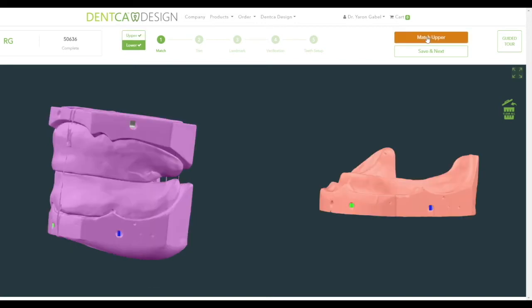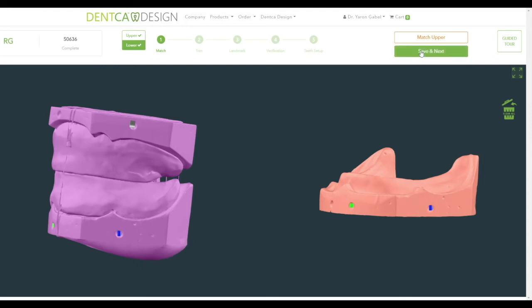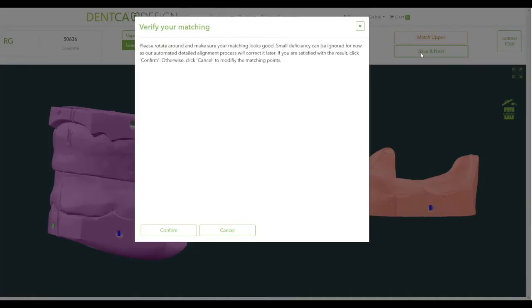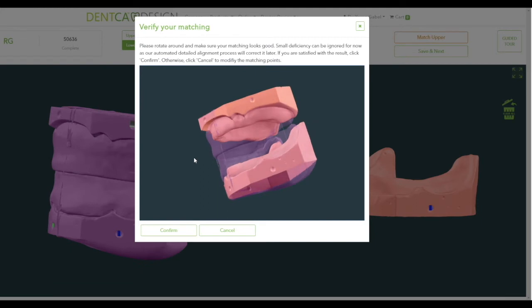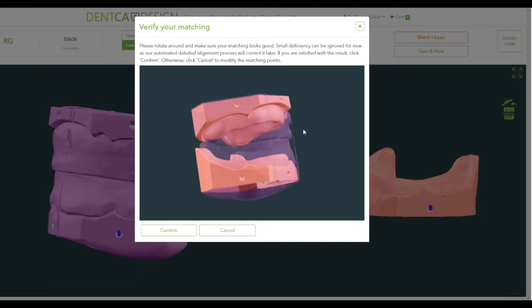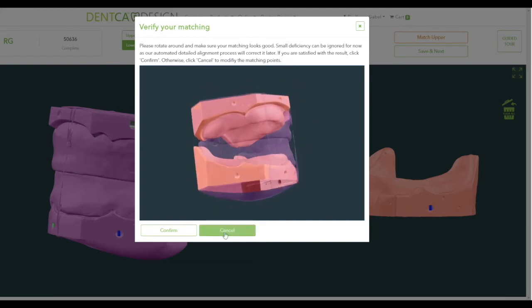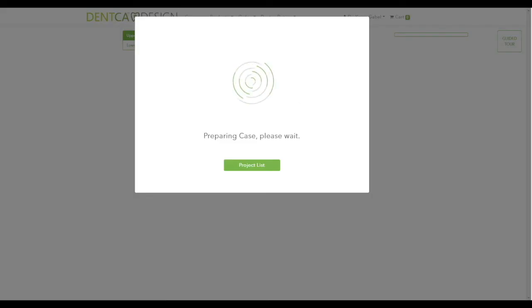Once the upper match is done, a checkmark should appear next to the word Upper on the top panel. Click the lower button under it and continue to match the mandibular arch. Your previous dot marks on the bite will turn gray to avoid confusing the lower and upper arch markers. Should you want to switch back to the upper arch, click on the Match Upper button on the upper right section of the screen to toggle back and forth between arches. Repeat the same matching steps for the lower arch, and after all three matching points have been placed for upper and lower arches, click Save and Next. A validation screen will appear to help ensure all your points have been matched properly. If there is a slight variation, it will be corrected with the automated alignment. Otherwise, click Cancel to go back and correct the points manually. Once everything looks good, click Confirm to begin the trimming process.